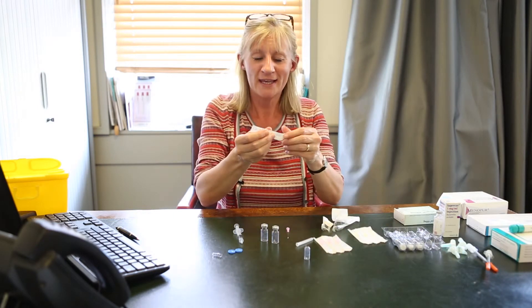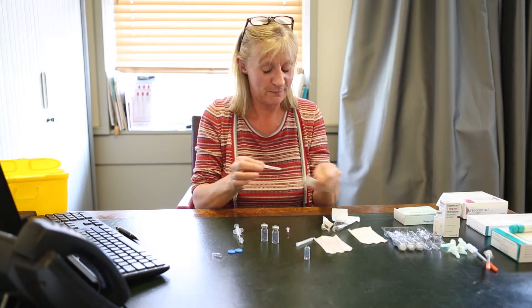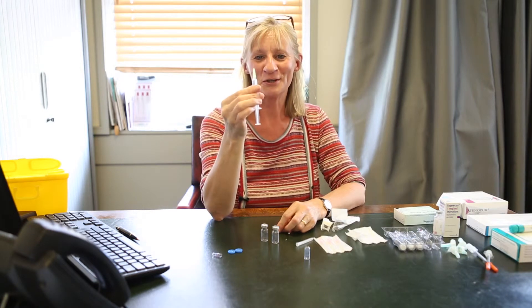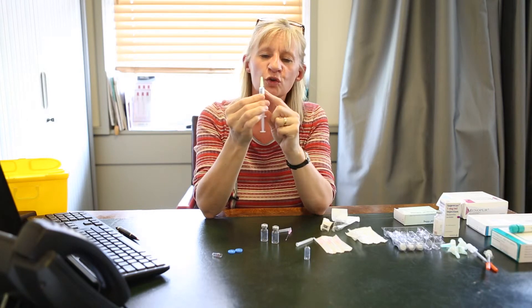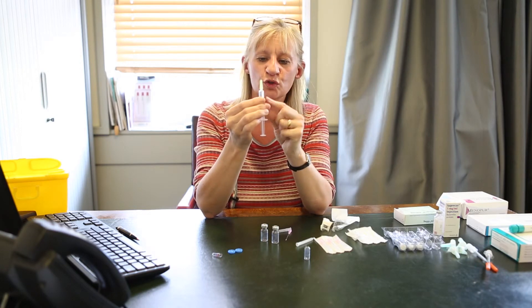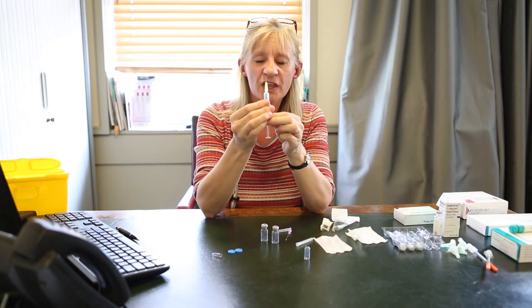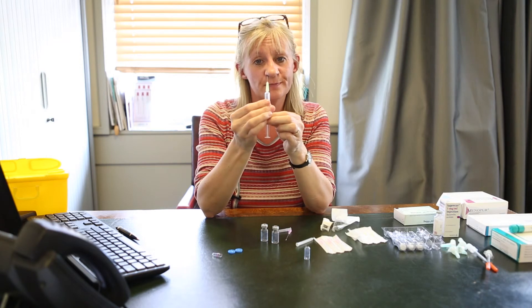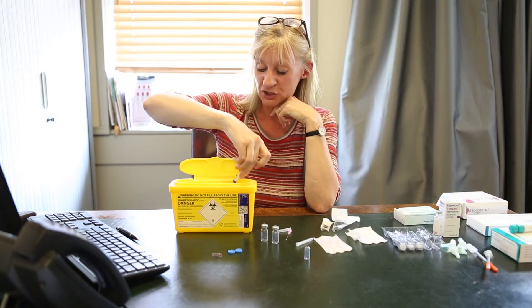Take one of your nice small yellow needles, open that up and put that on. You can see that's far more suitable for injecting than the large pink one. Don't worry if you've got some small air bubbles — you're not going to do yourself any damage or harm. People often panic and will try to get rid of them all and lose a lot of the fluid. This is now ready for injection, and you are going to inject this either into the abdomen or into the thigh, whichever you prefer. Once you have injected, you will take your sharps bin that you'll be provided with and pop that needle and syringe in there.